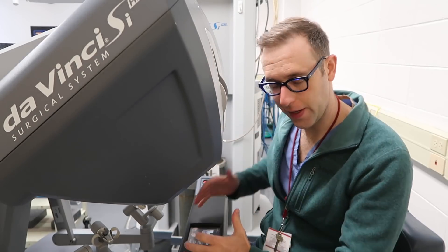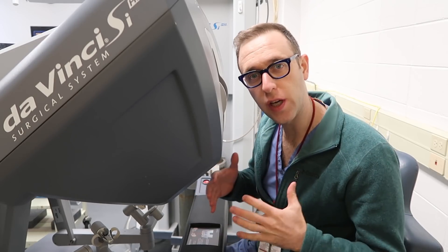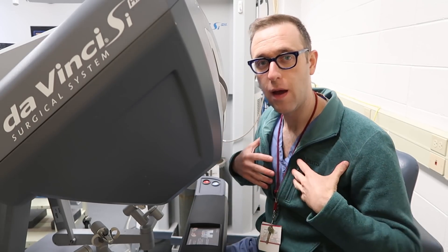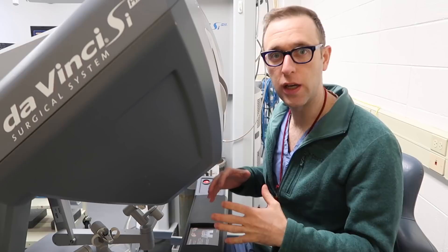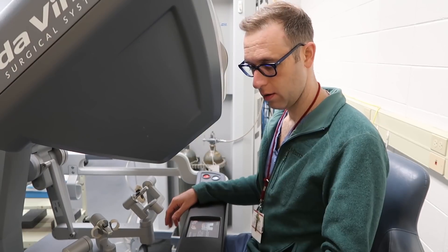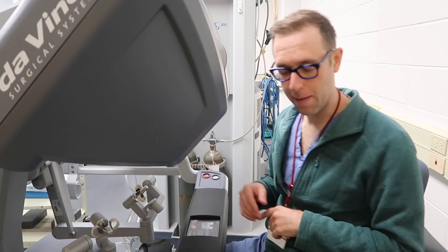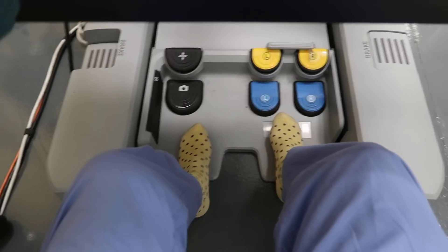The first thing I'm gonna do sitting down is adjust the machine so that it fits to me rather than me having to fit into the machine. That's that part. People usually sit in this in socks.